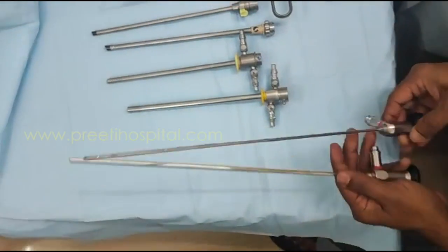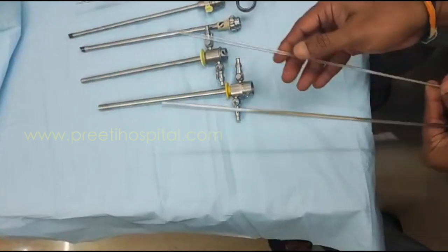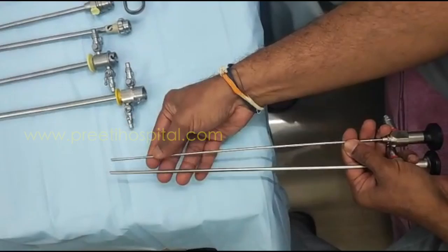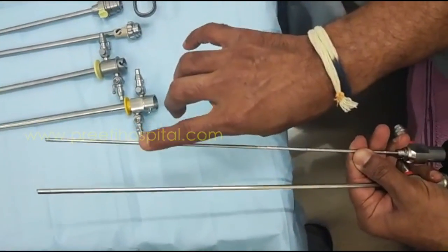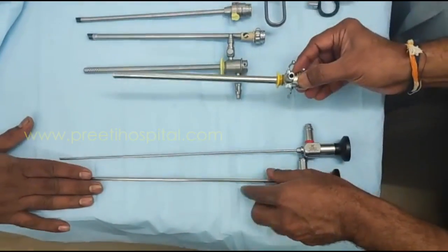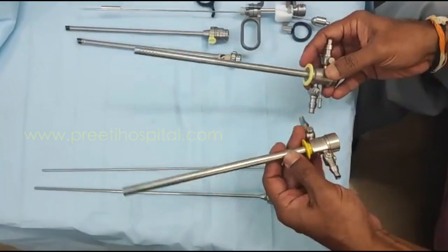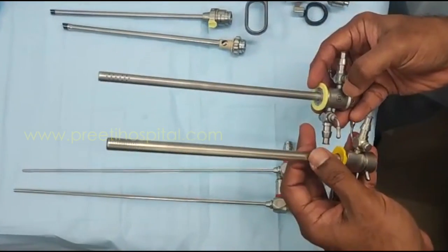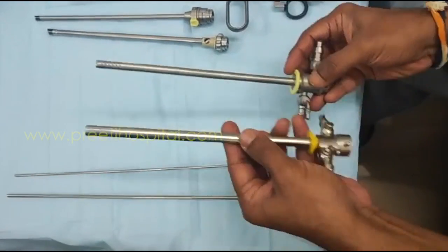This is a telescope from Storz and this is a telescope from RK Medical. Both are 30 degree, but if you see here, there is a very thin telescope — this is 2.4 mm and this is 4 mm. The outer sheath: this is 26 French and this is 22 French. Here it is written 22.